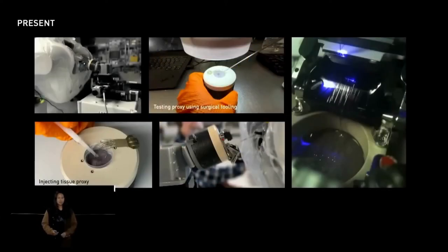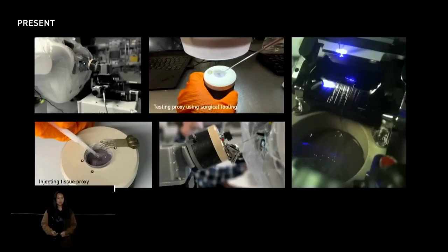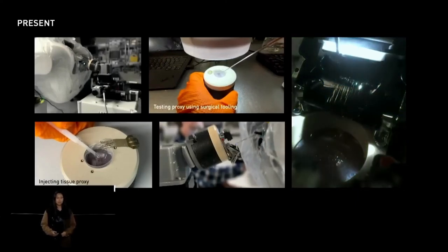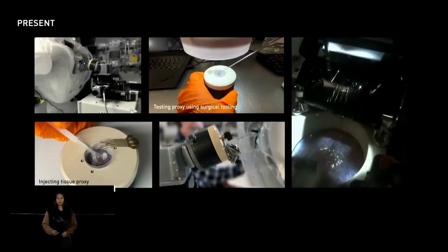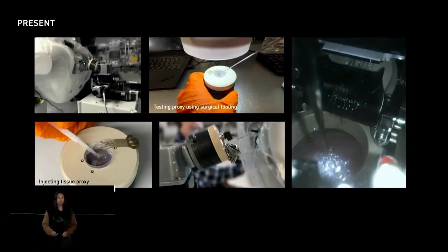We've come a long way from our humble first brain proxy, shown here sitting on a plate and consisting of agar and a parafilm sheet. And while simple, it allowed us to perfect robot insertions through countless benchtop tests. Today, our proxy is slightly more complex, where we've upgraded to a composite hydrogel-based brain proxy that better mimics the modulus of real human brain.